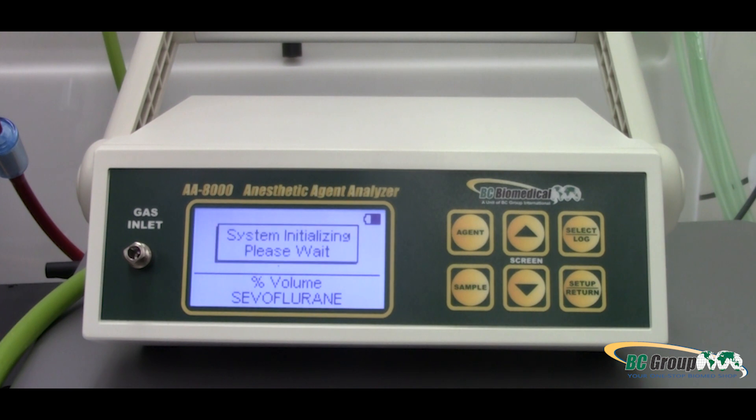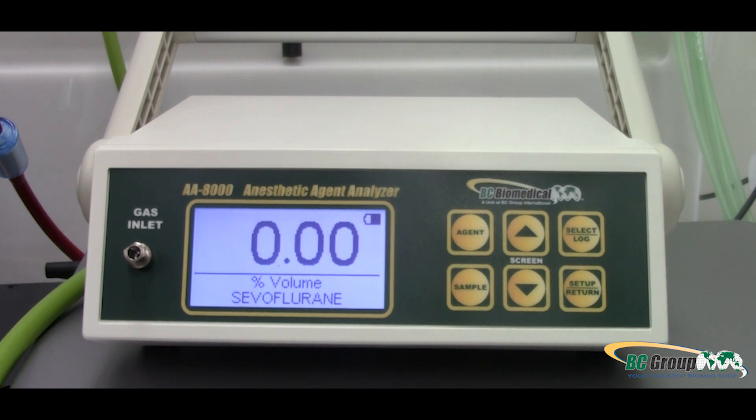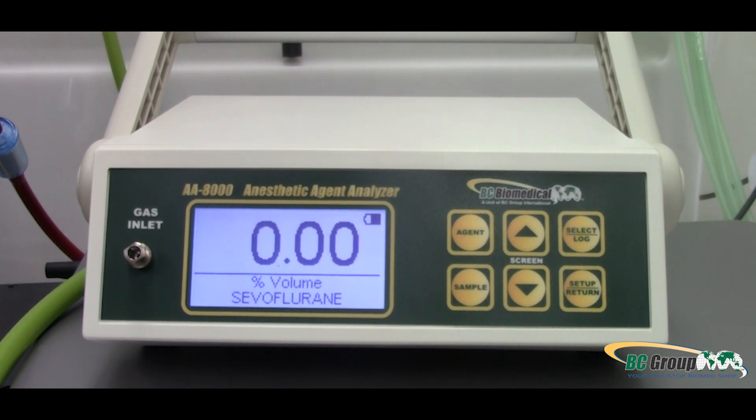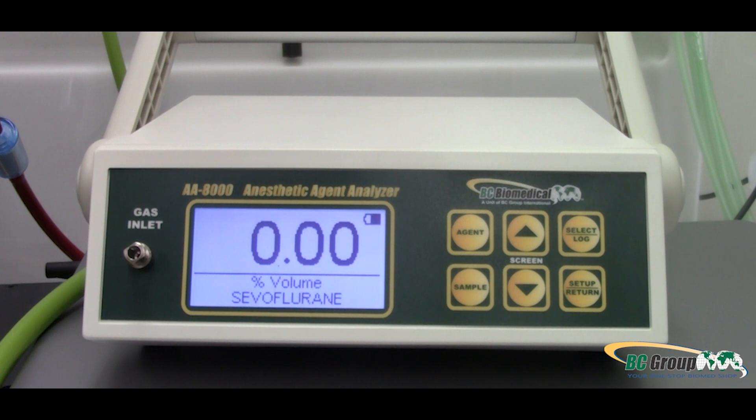When finished, the primary screen will appear, showing a reading, battery indicator, and agent being measured.